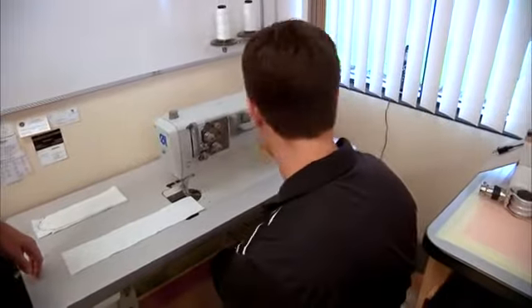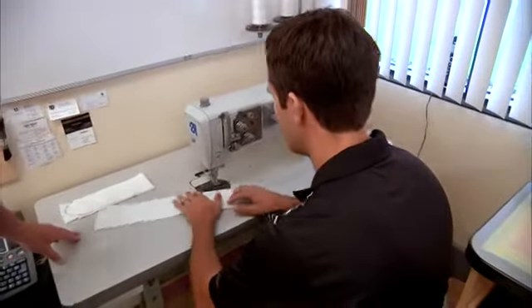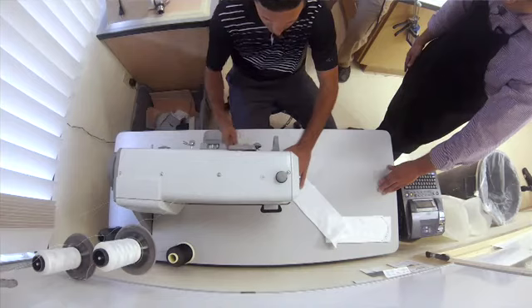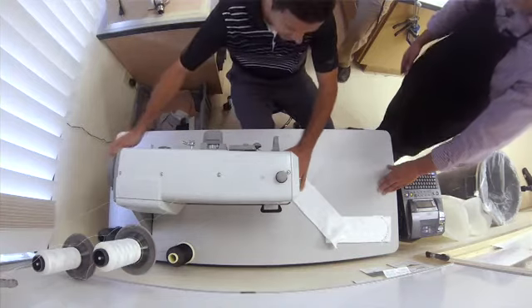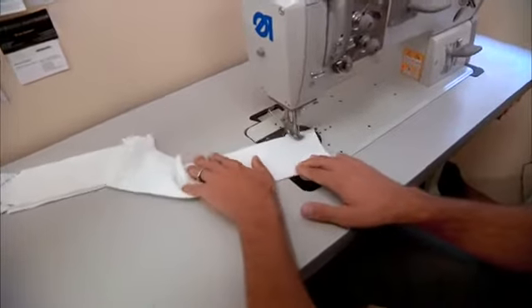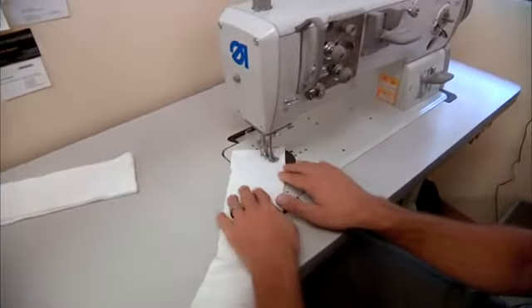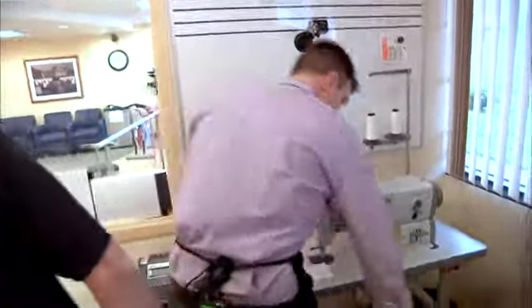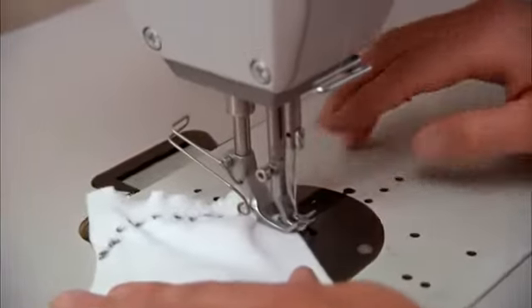So let's go ahead and show you what we're going to do. We're going to create a BK casting sock. We're going to start here on the edge and use the foot pedal to push in. We'll reverse it, lock in the stitch, and then we're looking for just a nice rounded end to the sock. After a quick lesson, Brian wanted to give me a shot at the sewing machine. But unlike my nana, I wasn't very successful.